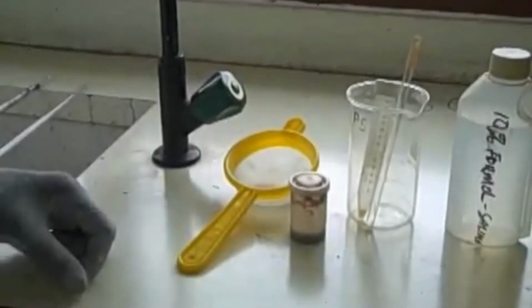These are the items we require in the stool concentration technique. We need the stool sample, the fine mesh of pore size 350 to 450 micrometer, the 15 ml centrifuge tube, a glass applicator for emulsifying the stool sample, the beaker for the filtrate, then 10% formal saline for mixing the stool, then diethyl ether.